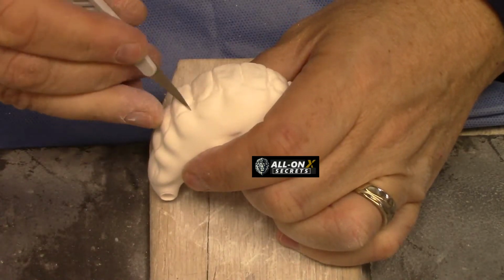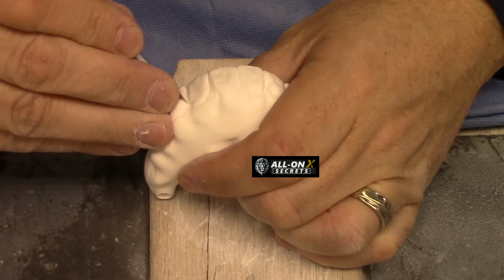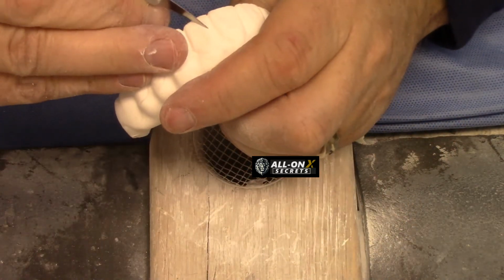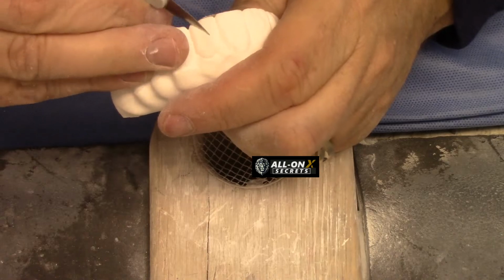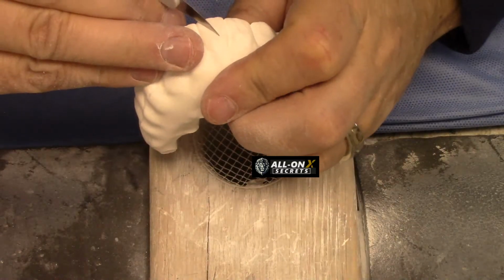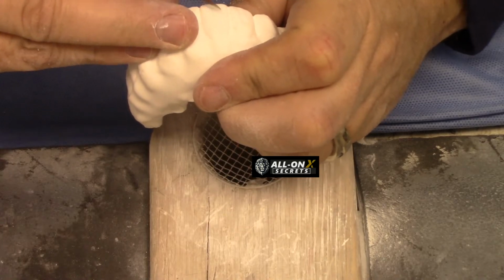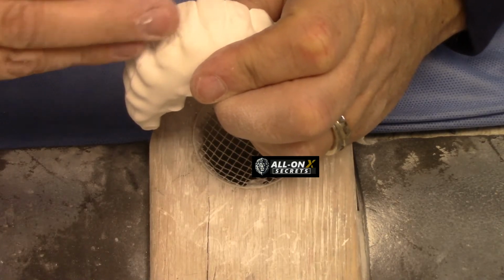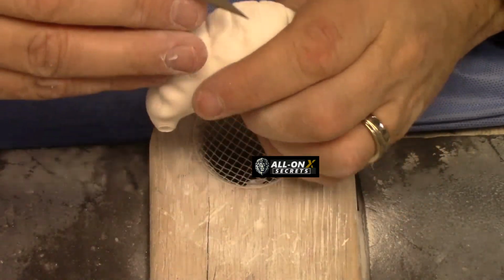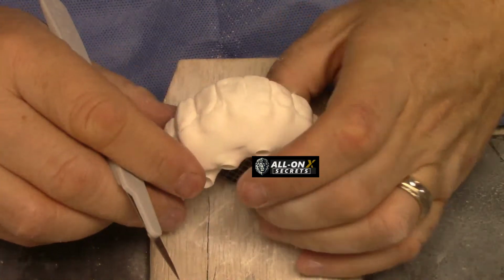I just come in. I'll come from the side like this. Sometimes you just get some roughness. Sometimes you want to create a little flatness. You think about when you make something flat, you're making it look bigger because light is going to reflect off something that's flat, right? When you want to hide something or make something smaller, you curve it, which makes it look smaller.